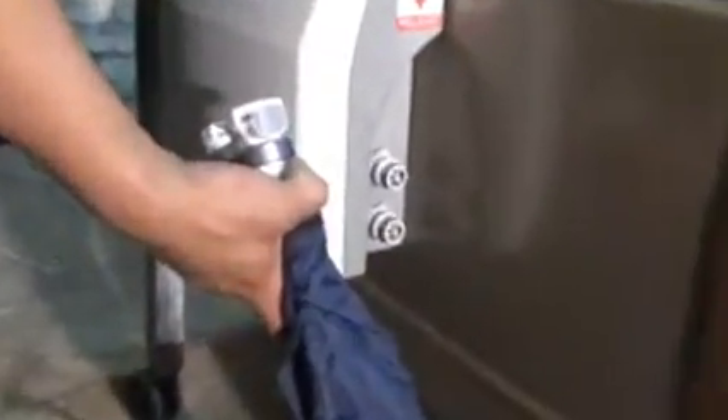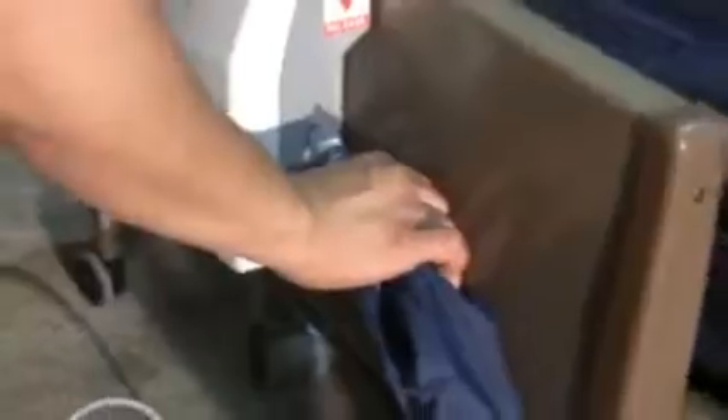Once you have inspected, you would want to take your air tube set and connect it to your air control unit, which will be hanging on your footboard. Simply guide the male and female connection pieces together and press until they click into place. Once they have snapped into place, you can pull slightly on the tube set itself to ensure that they do not disconnect.